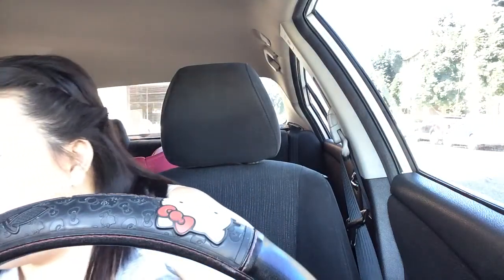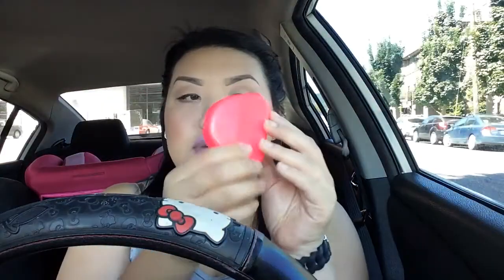As for my tongue guard, I did get the removable tongue guard. Let me get it for you guys so you can see how it looks. It comes in this little thing here — this is like the retainer tongue guard holder. And then this is how it looks. This right here is the guard; this is what holds the tongue back.